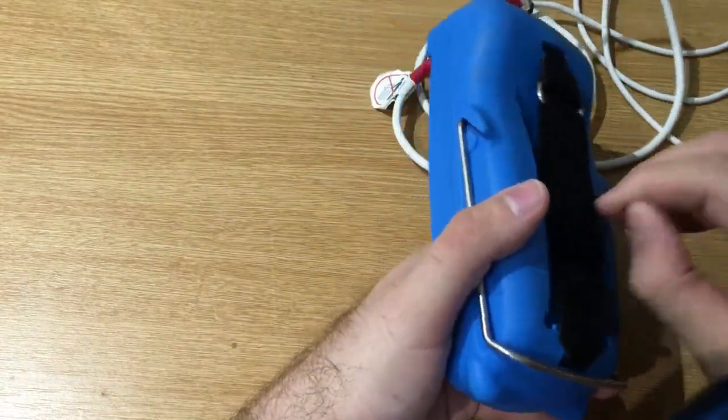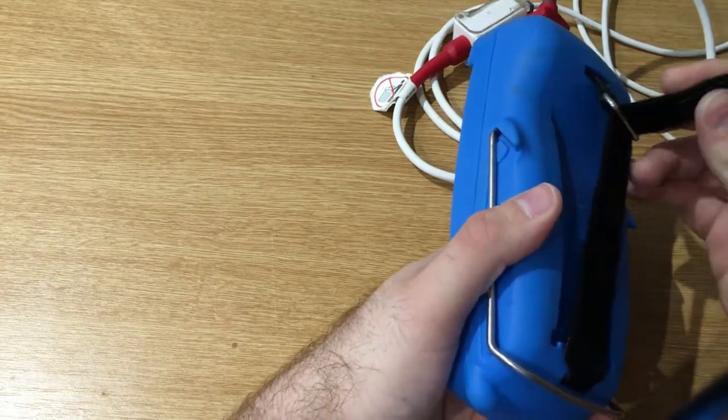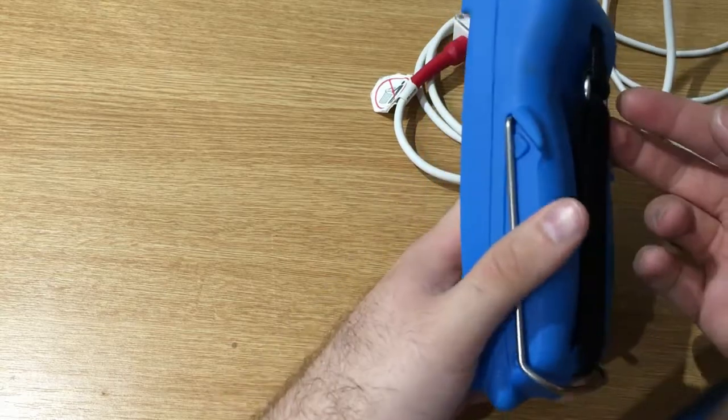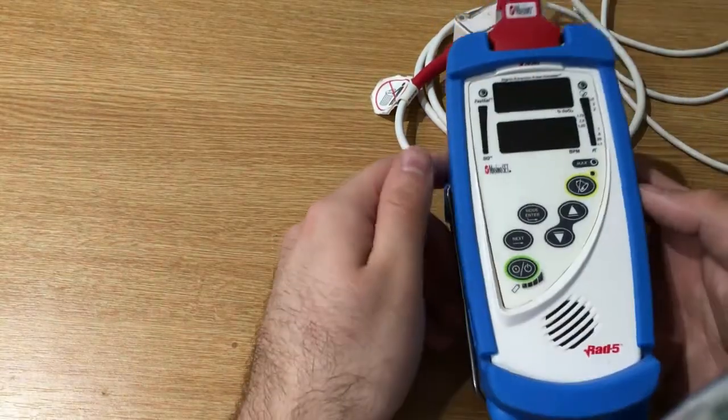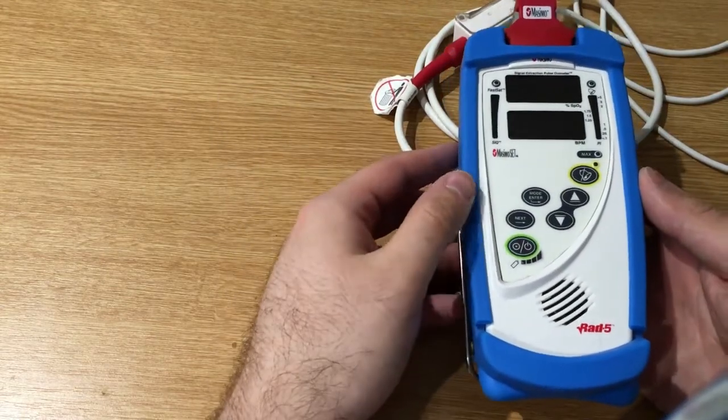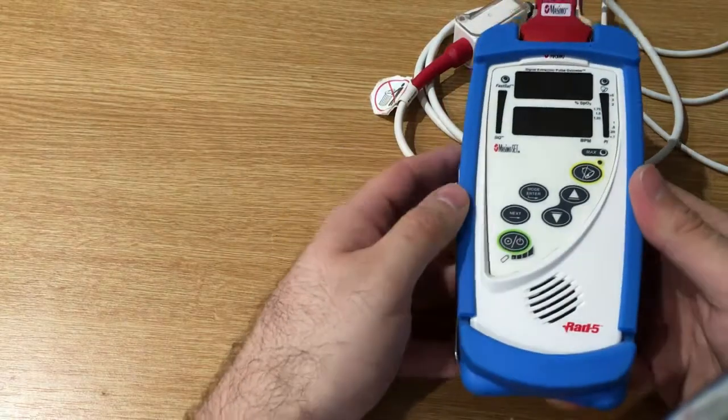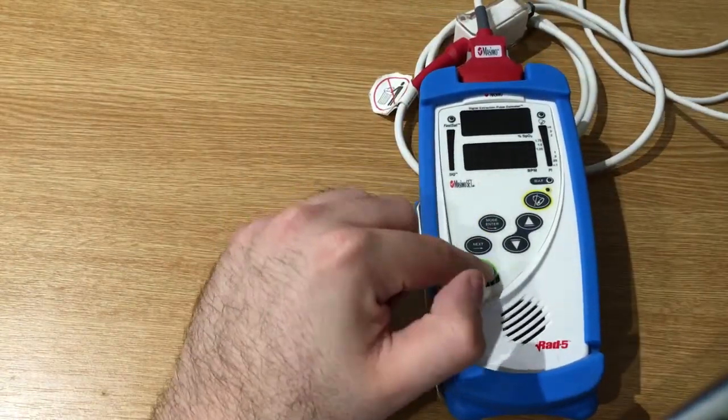It has an included table stand that's pretty stable. It also has a strap on the back, and that's pretty safe as well, so you can really put it wherever you want and it will be pretty safe.